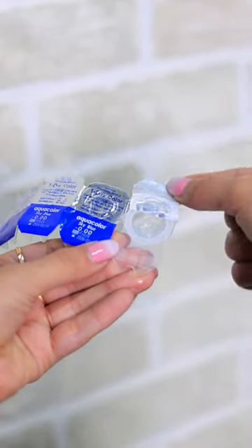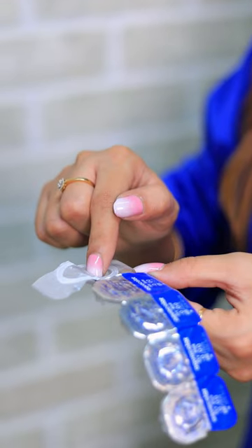How to wear lens: wash your hands and dry them thoroughly. Use the padding of your pointer finger to pick up the lens. Put the lens on the pointer finger of your dominant hand and inspect it — make sure it's not inside out. Use the middle and ring finger of your non-dominant hand to hold the upper eyelid, and use the middle and ring finger of your dominant hand to hold the lower eyelid.